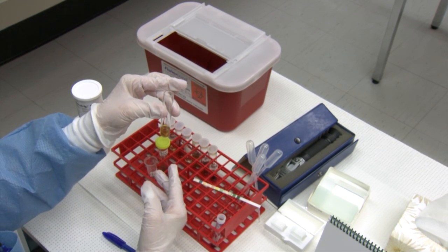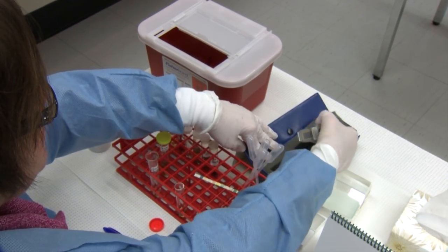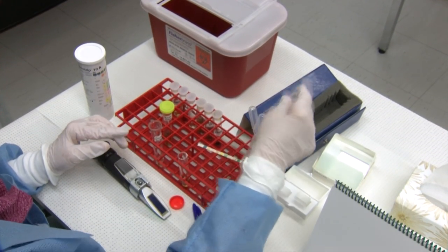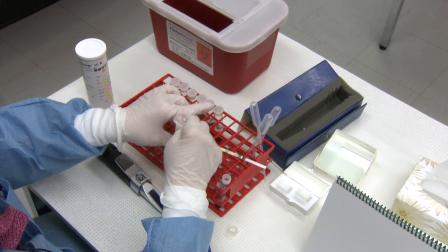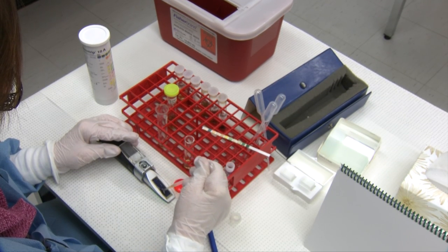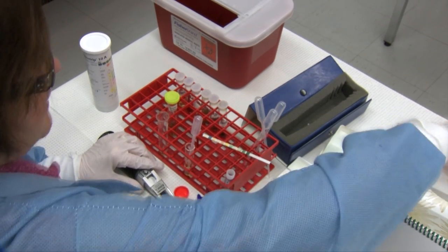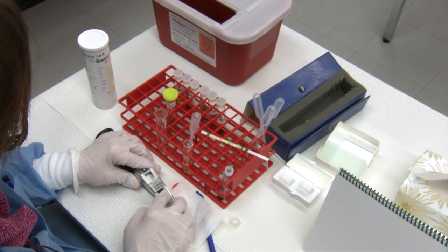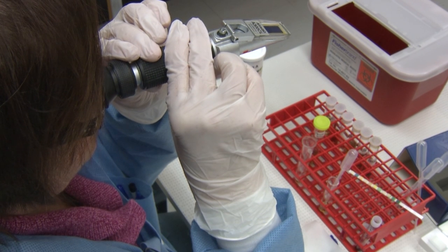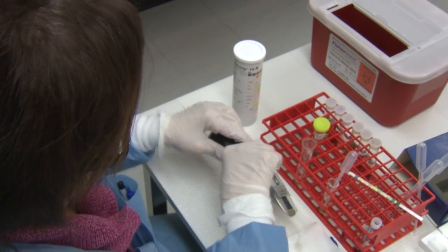The supernatant — the part you've poured off — is what you want to use for your refractometer reading of the specific gravity. All refractometers are made slightly different, so you read the scale that starts at 1.0, and whatever refractometer you're using, that's the scale you will see. Just flood your urine onto the scale, make sure it covers the full length, look inside, and get your specific gravity reading. Today ours is 1.050.